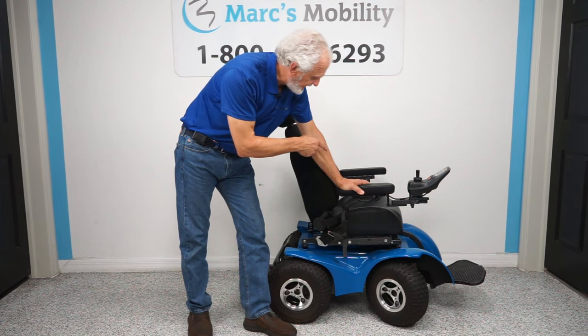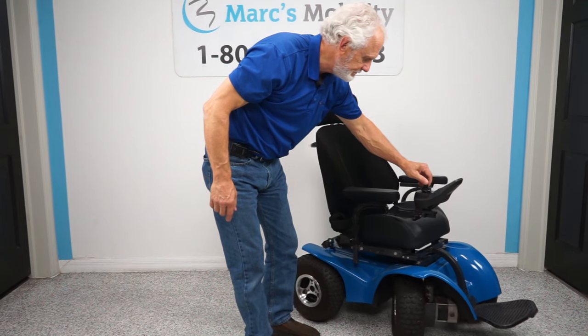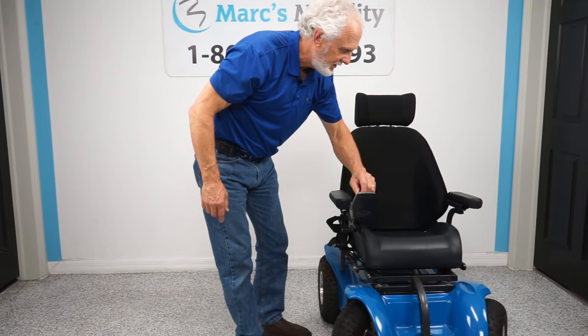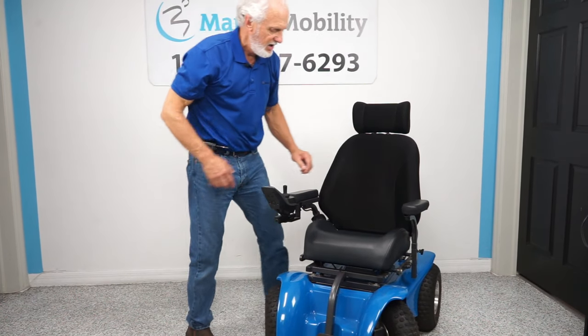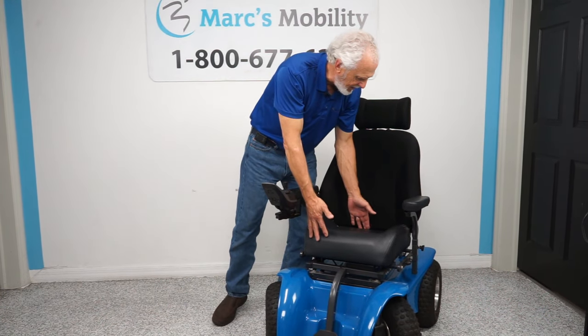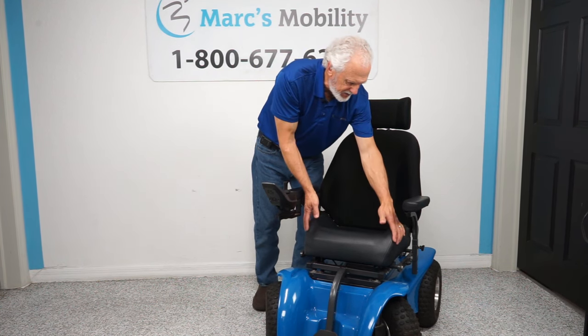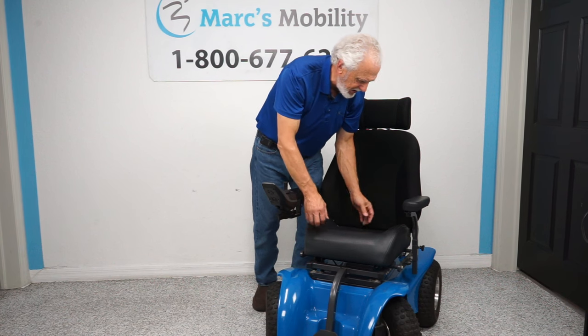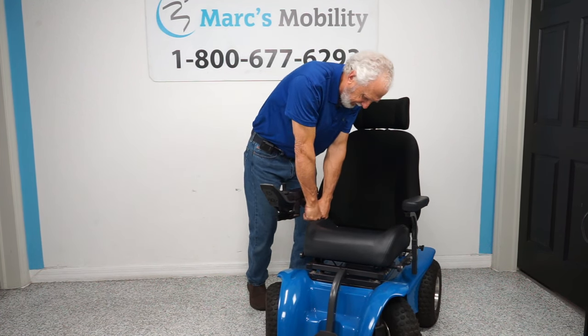It's an Extreme 8. The seat on this chair — there's not a lot of room in this office to do these videos on chairs of this type. The seat is 18 by 17: 18 wide by 17 deep. It does have a wide back but a small bottom. Note that there's metal running along these sides, so that limits the effective width a bit.